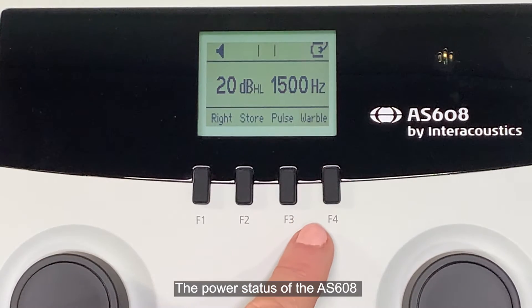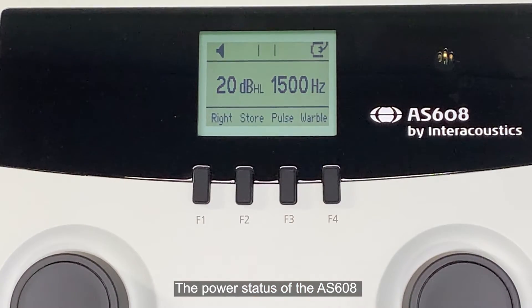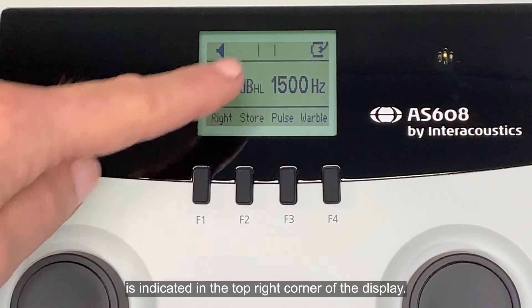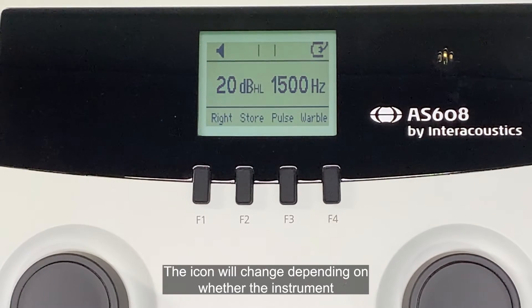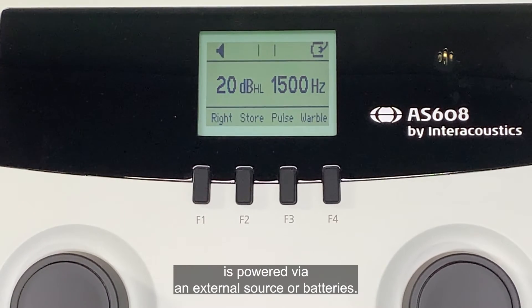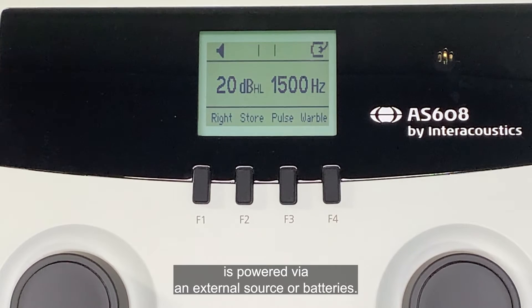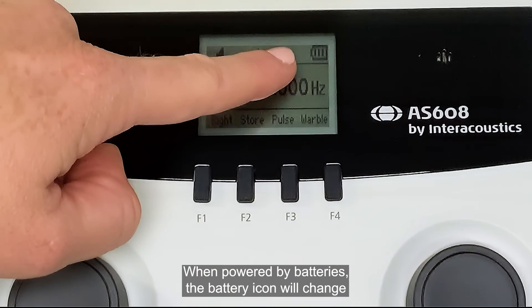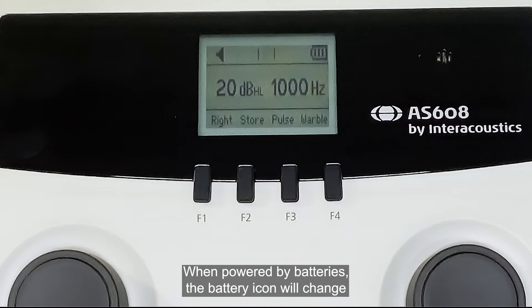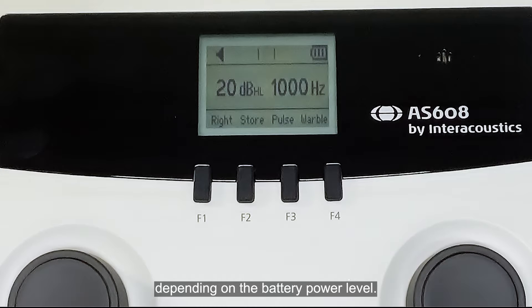The power status of the AS608 is indicated in the top right corner of the display. The icon will change depending on whether the instrument is powered via an external source or batteries. When powered by batteries, the battery icon will change depending on the battery power level.